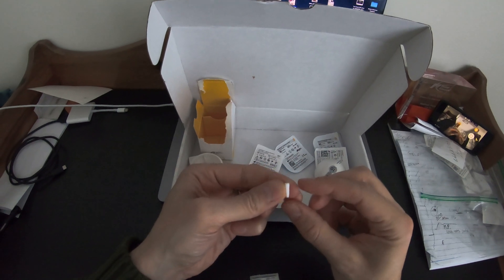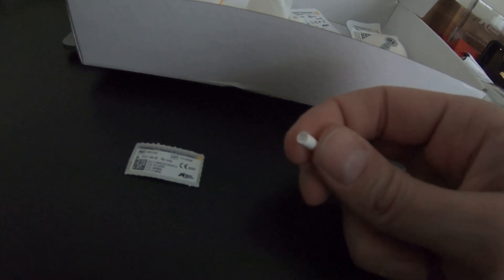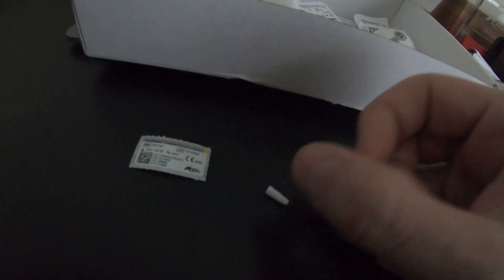And that's the Pearl — a full zirconia implant, no metal sleeves of any kind. 100% zirconia implant, 100% zirconia abutment, carbon fiber screw. 100% metal free.